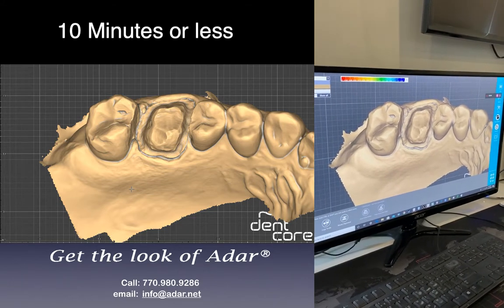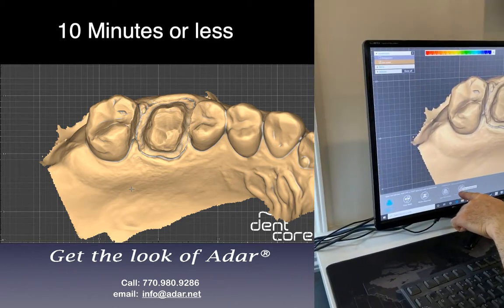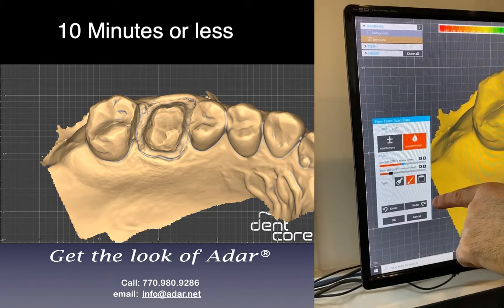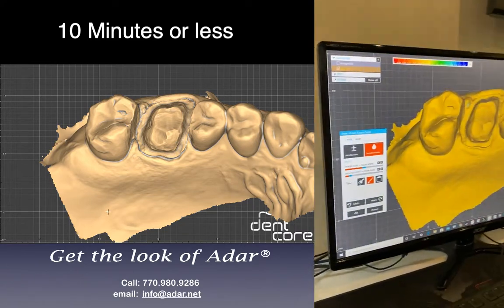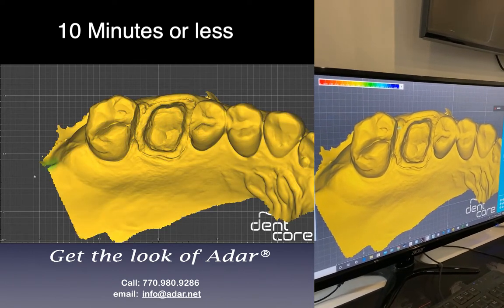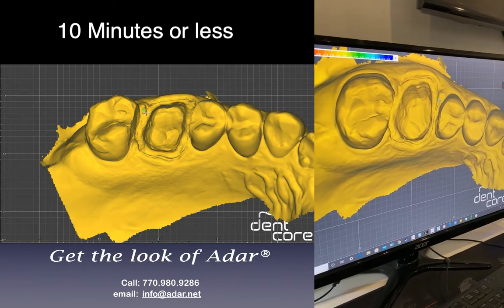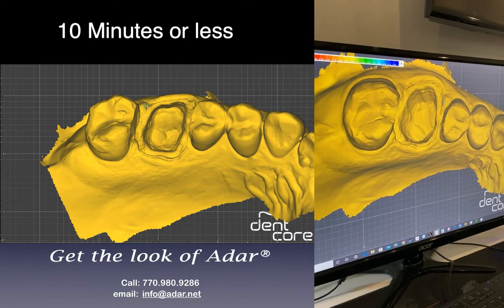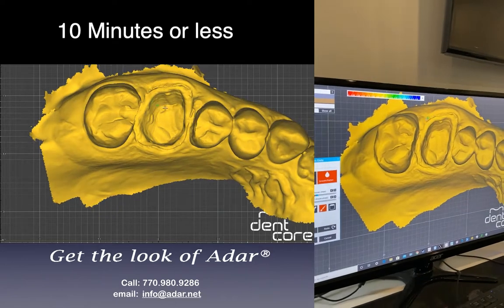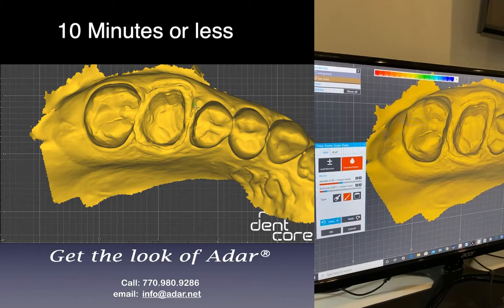So I'm editing the data. You see there's a little bubble here, the tissue sitting here. So I go to freeform scan data in export mode, click on that small little brush and smooth. Then just smooth this area up right here. If anything looks suspicious, just make sure you tell the doctor. If you push shift, you can do it faster. Say okay.